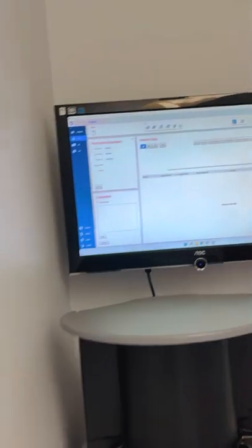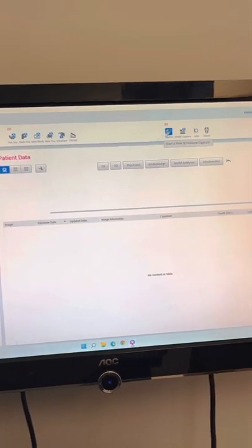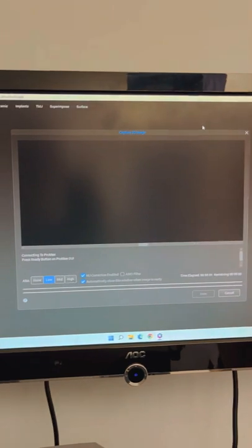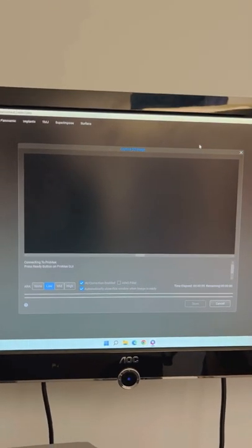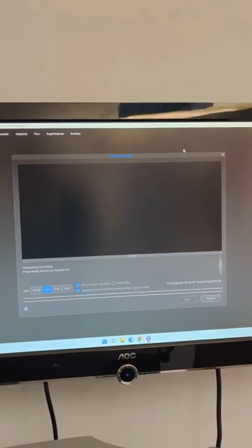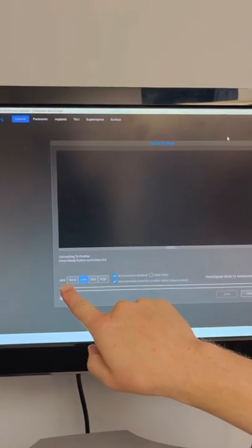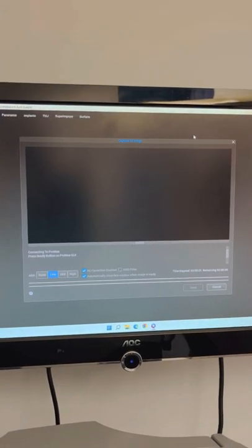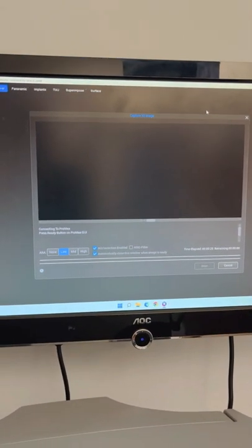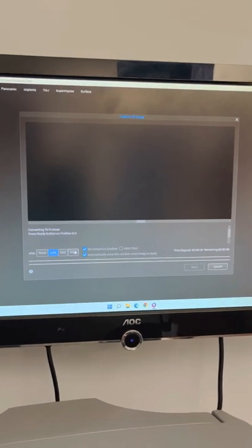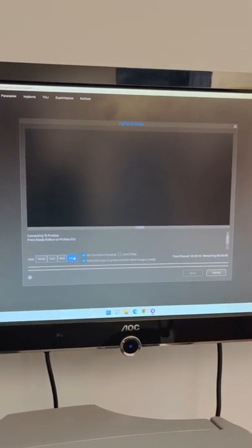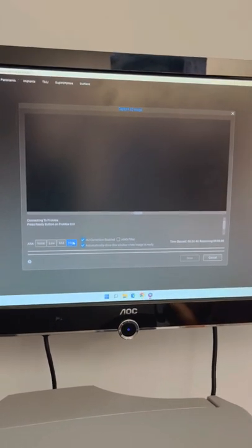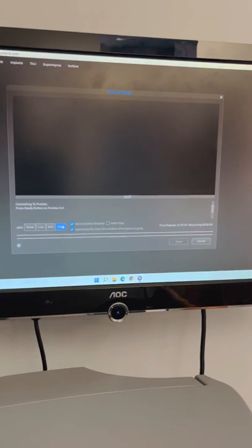In the software, click on the toolbar for a 3D capture — it says 'Start a new 3D capture volume.' You're in an oral surgery location, so I'd recommend — Dalton and I could do this — if you log into your server, we can default the artifact removal algorithm, the ARA, to high. Oral surgeons typically have a lot of implants and metallic objects that create artifact. You can set it at a higher level by defaulting the server to high, since right now the default is low. If you don't do it right away when you capture the image, it can be done after the fact without re-imaging the patient.